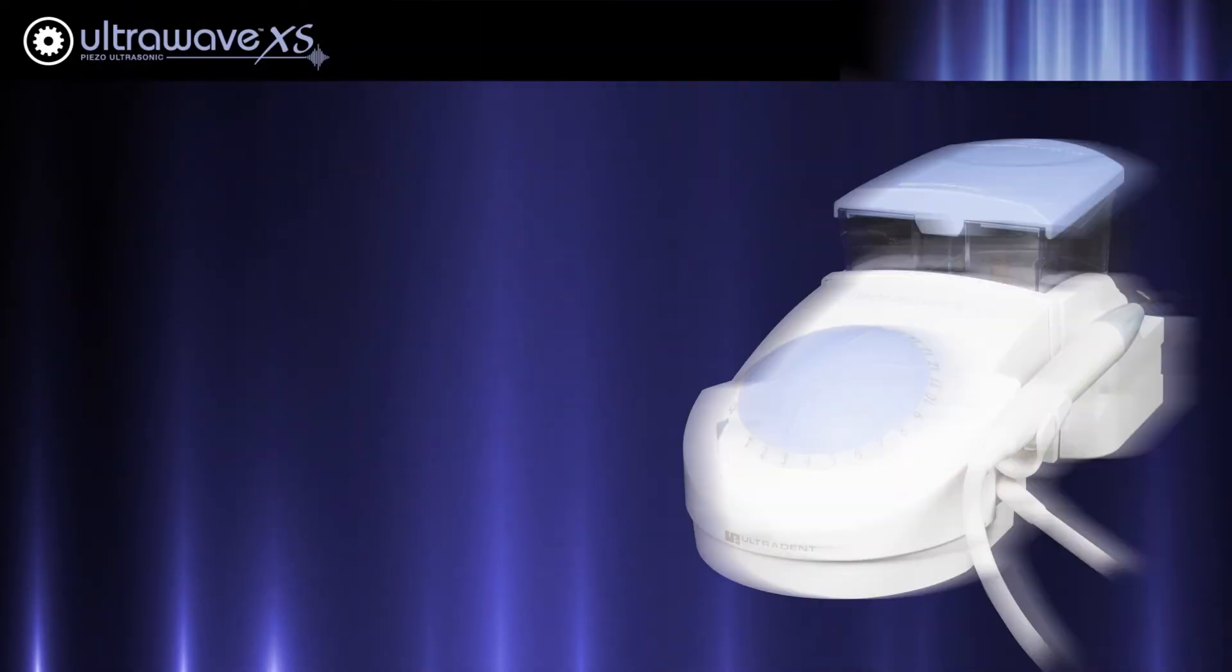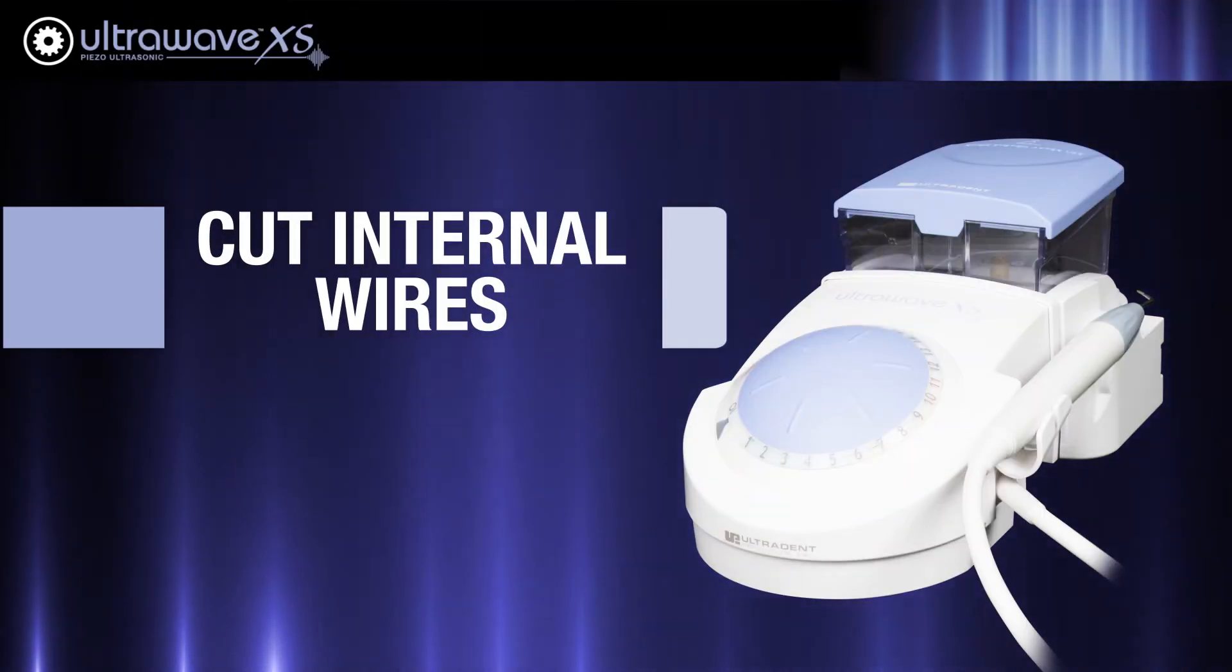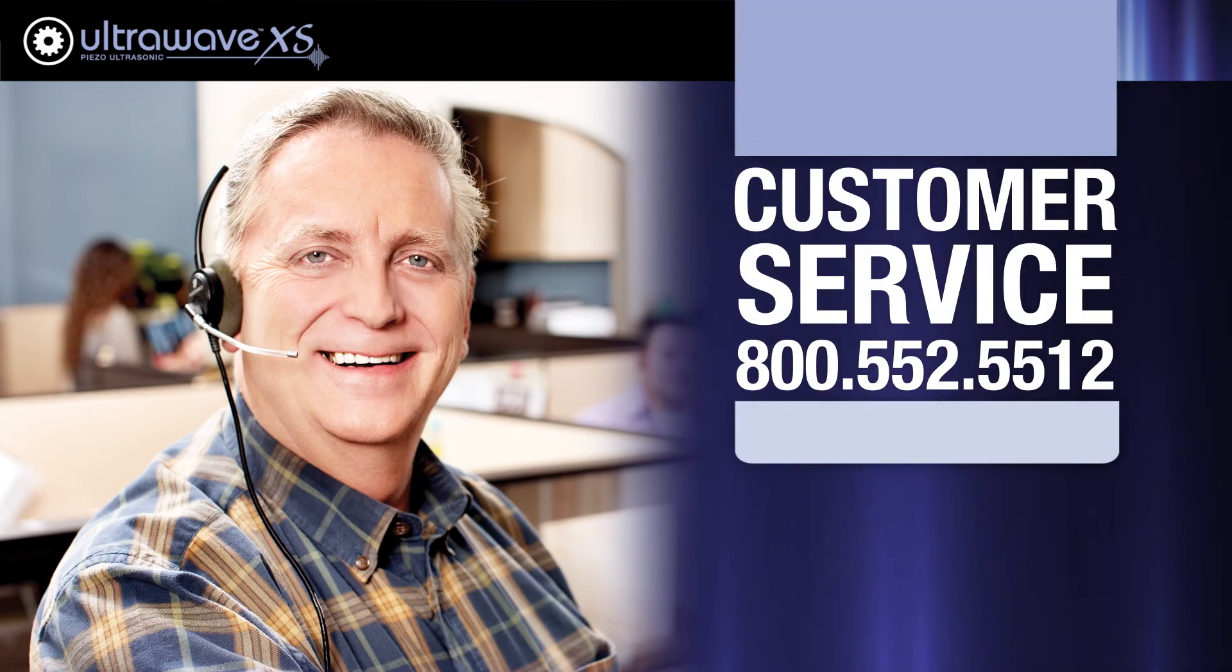If none of these steps fix the lack of vibration, there could be cut internal wires in the cord. If you believe that is the case, do not use the device. Call Ultradent customer service at 800-552-5512 for repair.